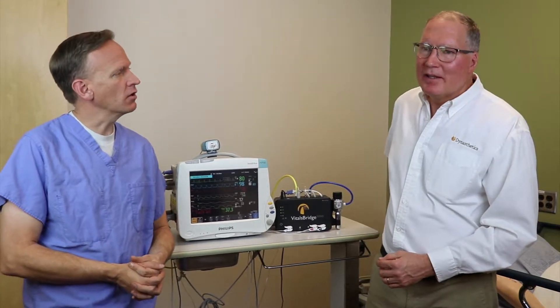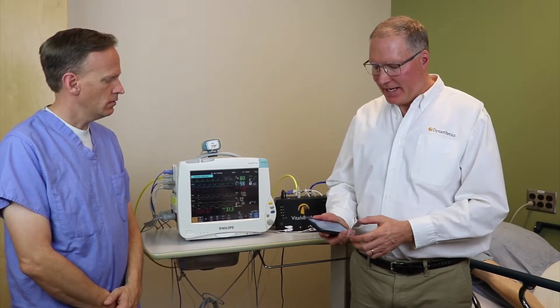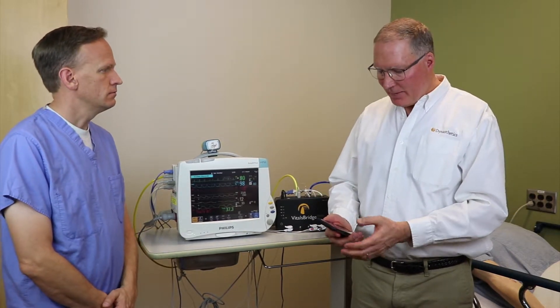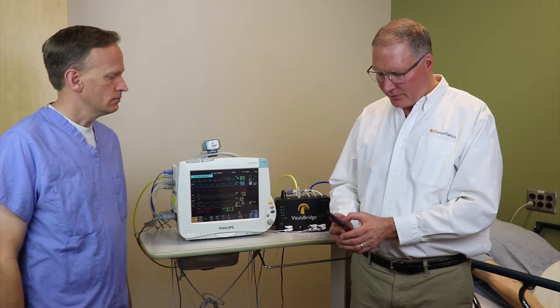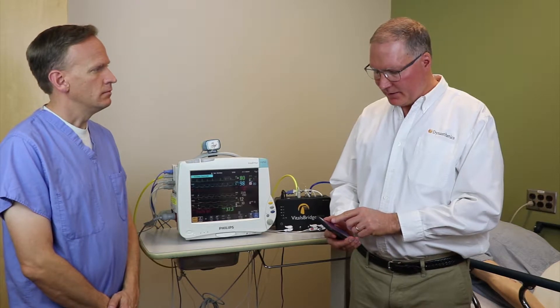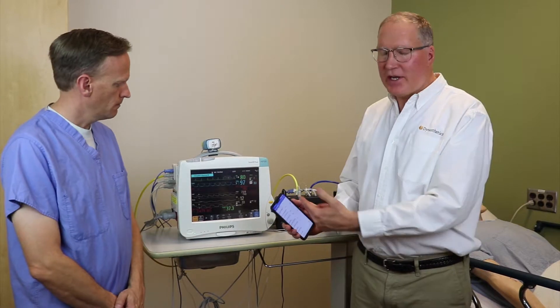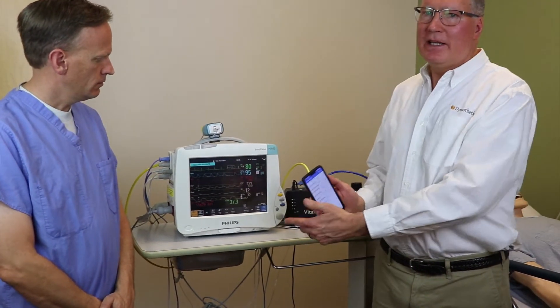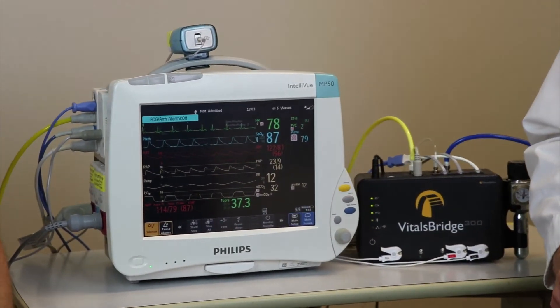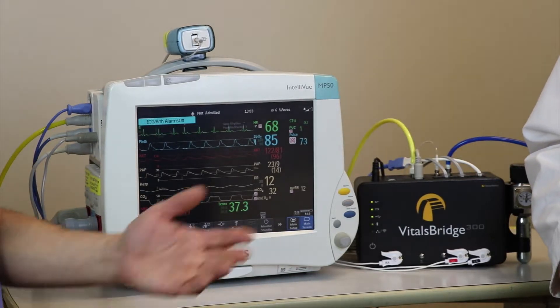I have here the Android app loaded on my Android phone, and it's connected over Bluetooth with this VitalsBridge. Right now we're simulating a healthy patient. I'm going to show you how easy it is to adjust, for instance, the oxygen saturation. Let's have this patient be a little hypoxic, and let's lower the heart rate as well. I can change any of these vital signs, and a few seconds later you can see that the vital signs change on the actual patient monitor. That way you can actually mimic your scenario using an app on the fly.